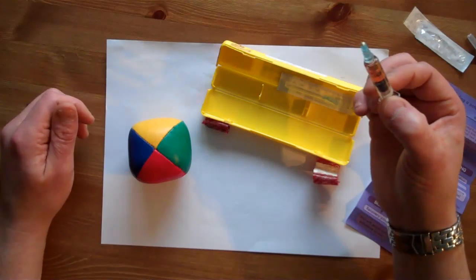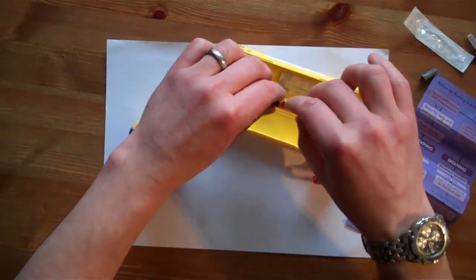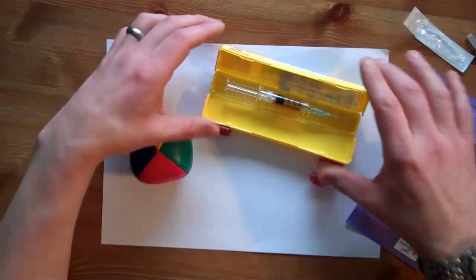We remove the syringe and we return it back into its cradle before closing the box over.